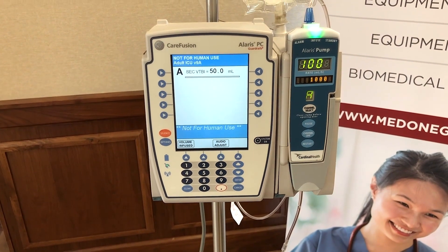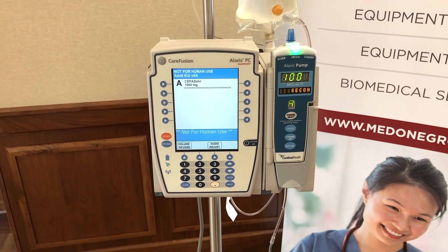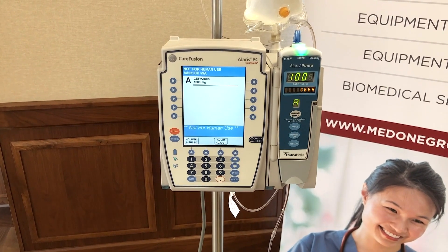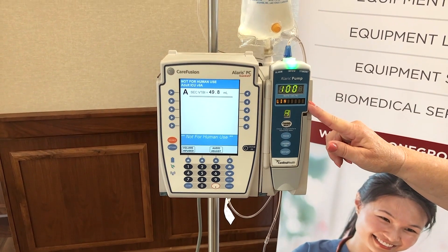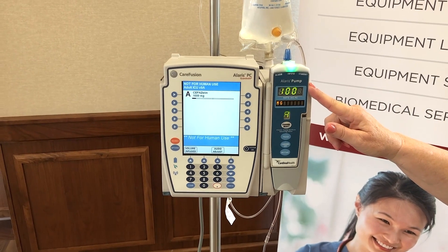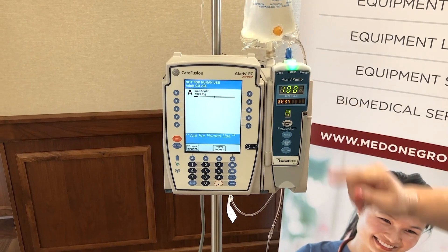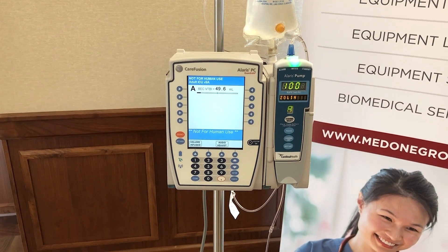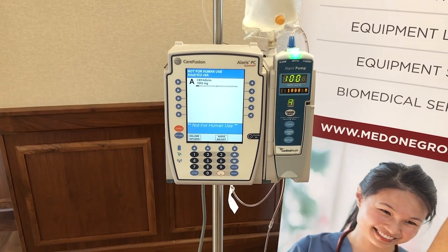So now you still have the green light, but what's running now is the ANCEF or the cefazolin, and it says secondary cefazolin at 100 mLs per hour. I want to show you what happens when the secondary infusion is complete, so we're going to manipulate the numbers to make that happen pretty quickly.